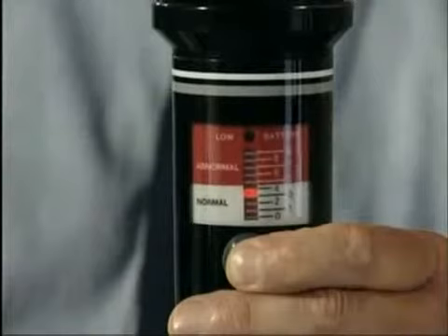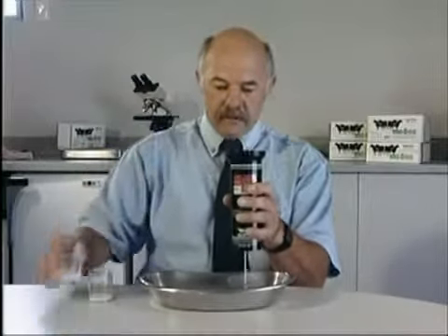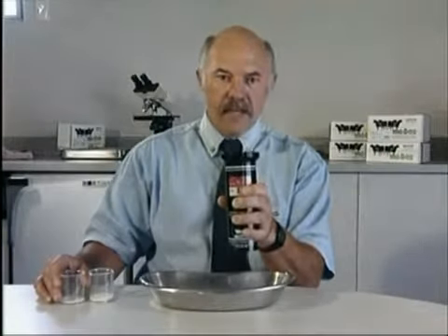Press the button and there's your reading. Instantly visible, easy to remember on the simple 0-9 scale. Now squirt the next quarter. The previous sample runs out the bottom. Press the button again and there's your next reading. Simple as that.